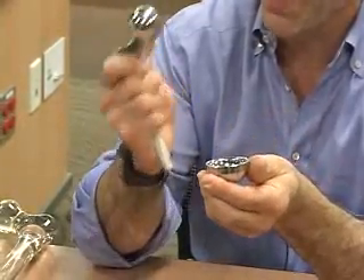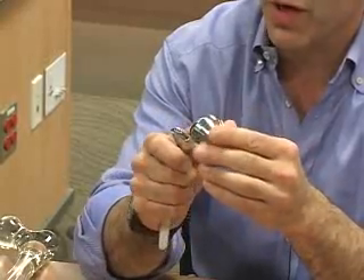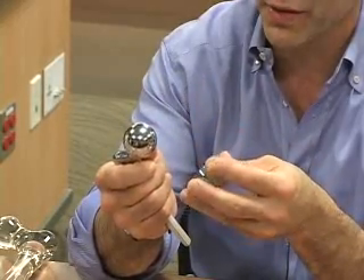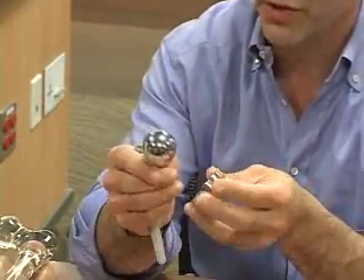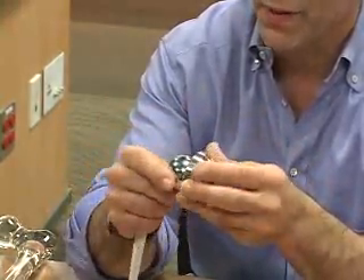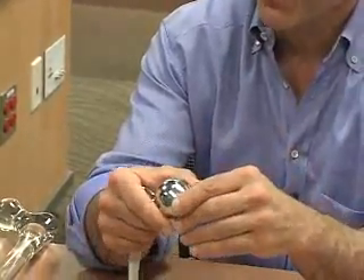In this example, we have a metal head with a metal socket. We call this a hard-on-hard surface. The advantage is it has extremely good wear characteristics. The disadvantage is that over time, metal ions get produced and they exist in your body. The metal ions have very little negative effect, but we do have some reservations when we put a metal-on-metal hip in a woman who is potentially childbearing, because those metal ions, although have never been proven to do anything, we don't want to risk anything.